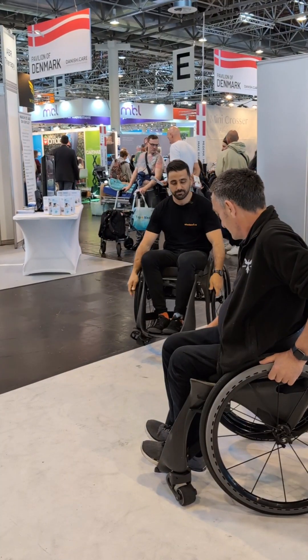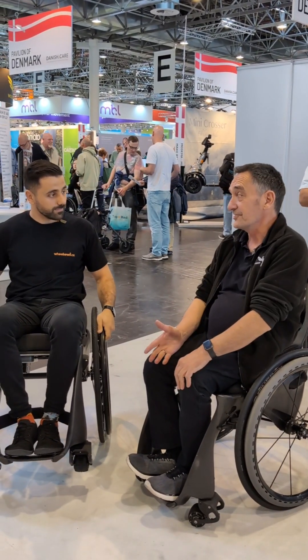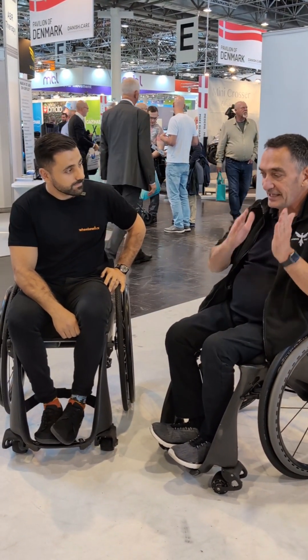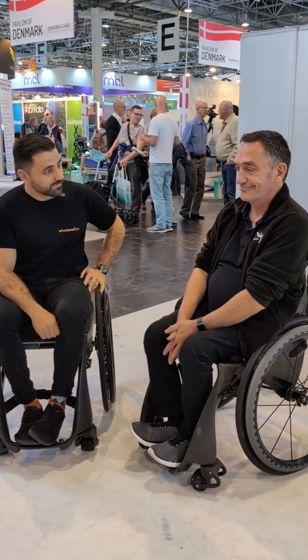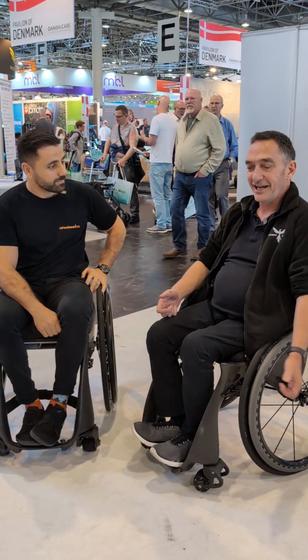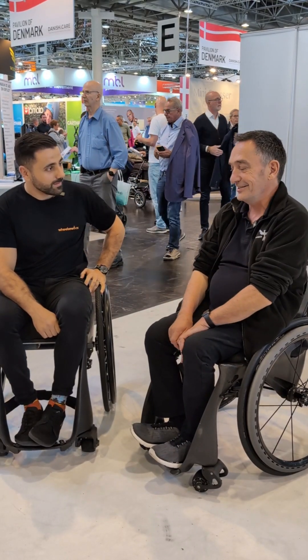What's it done for you? This has changed my life. I've used a chair for 41 years — this year is 41 years. I've had a lot of chairs in that time, and none of them have made any measurable difference to my life over the previous one. This is revolutionary. I do everything so much easier now — walking the dog, going to the supermarket, carrying my tea across the lounge. It's changed everything.